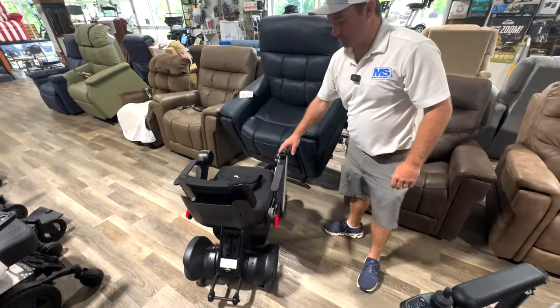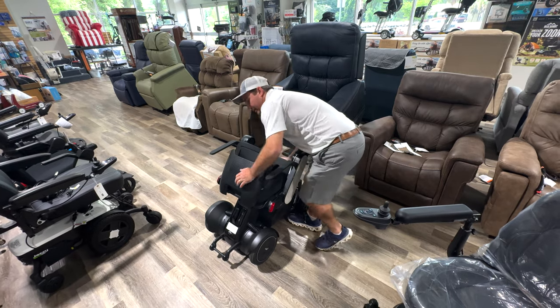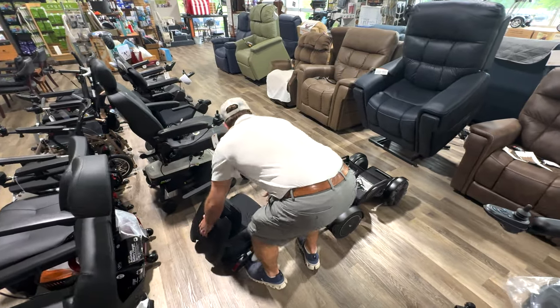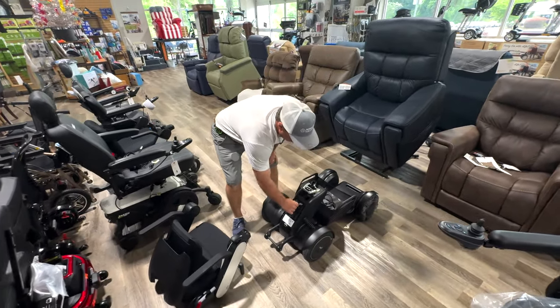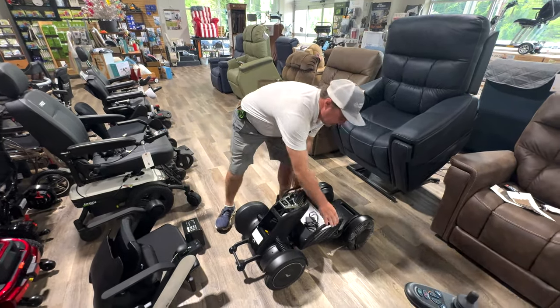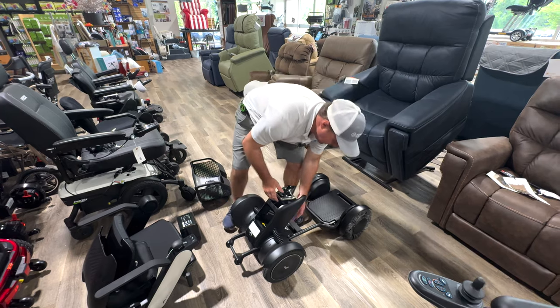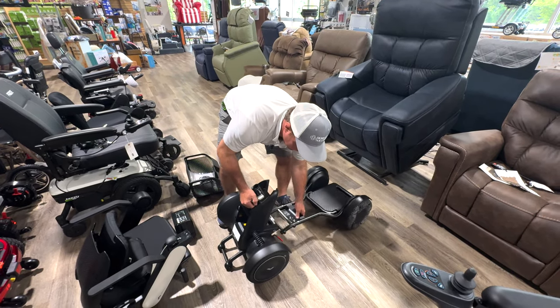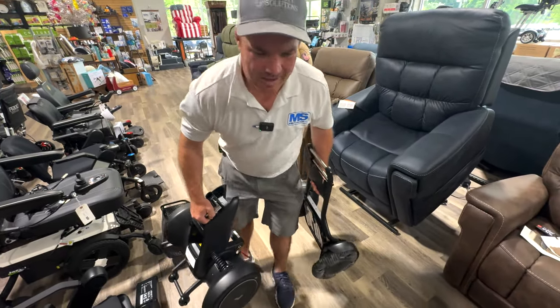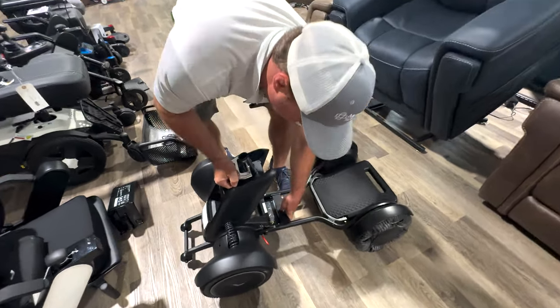This is the CI and it's a power chair. It comes apart pretty quickly — you take the seat off, there's a lever you latch right up here, this comes right off. Wireless disconnect. I'm not sure exactly the weight. Right here's your battery — the battery can come out, you can charge it through here. The basket just comes right off. You can charge this inside your house, leave this in your car. You can fly with this and disconnect it front to back. Each section is about 40-something pounds, but it's made very well — a very reliable chair.